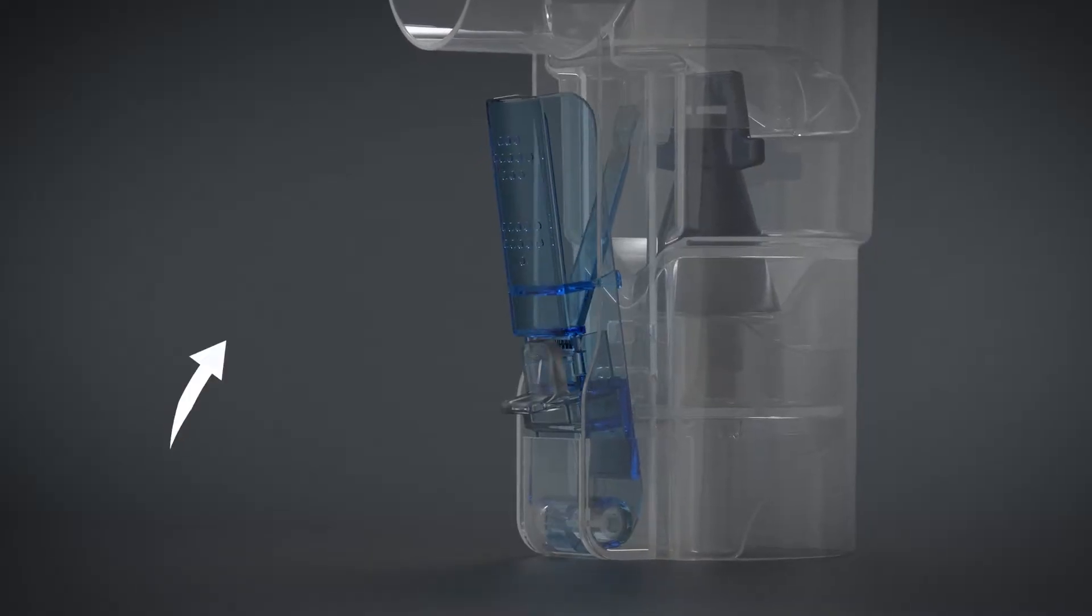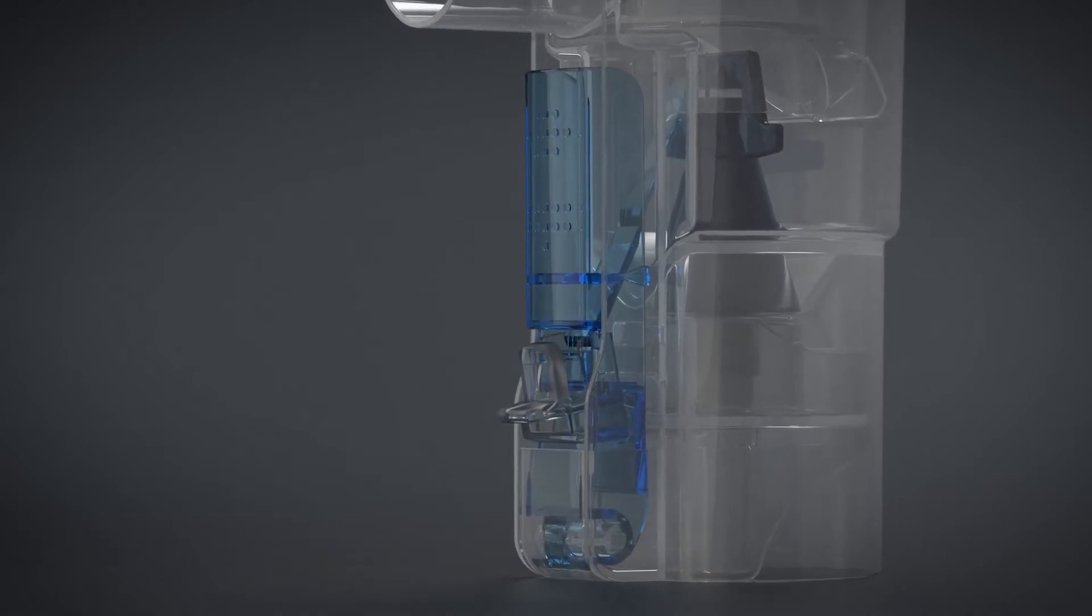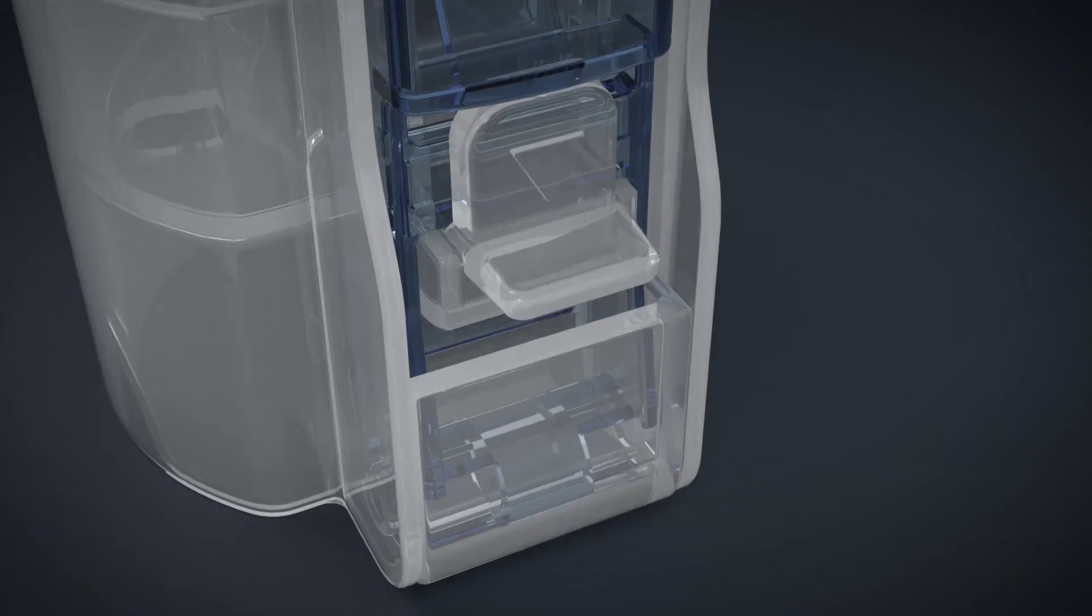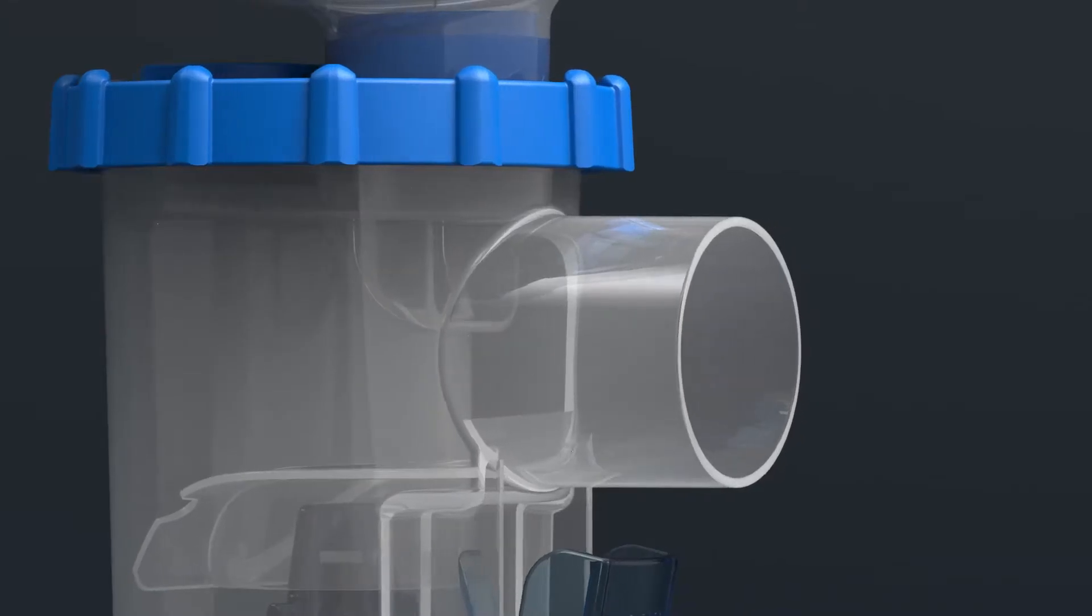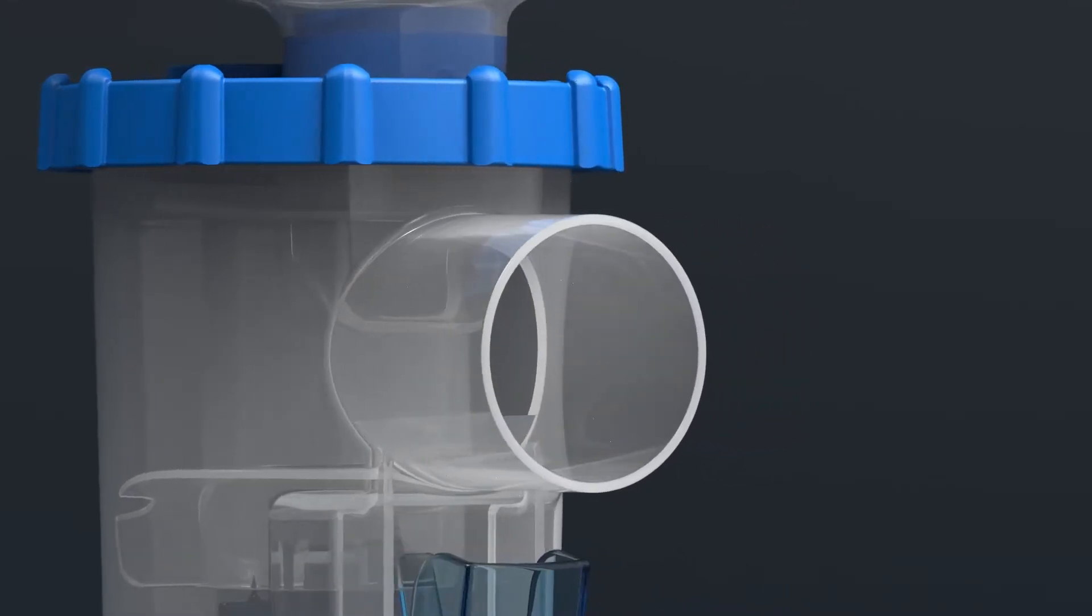Simply press the trigger to activate the nebulizer with each breath manually, or you can lock the trigger for continuous medication delivery. You're in complete control of starting and stopping treatment.